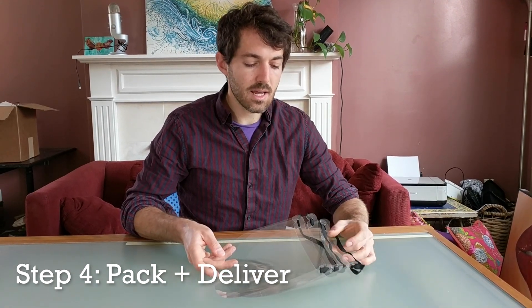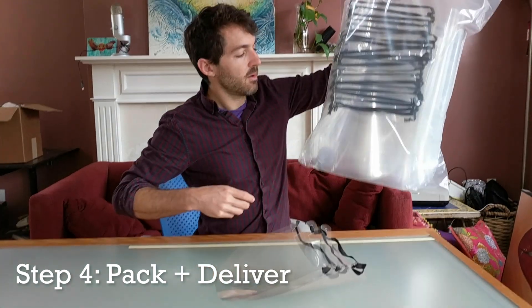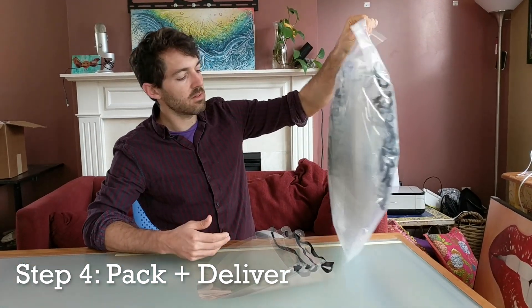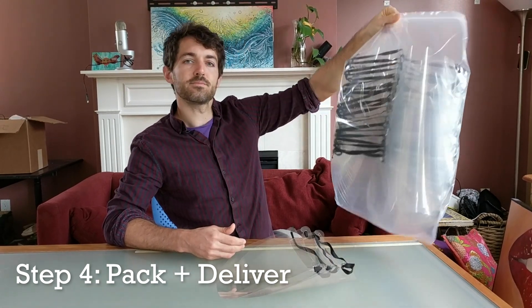What you want to do is stack them into rows of 25, and then put each row of 25 on the inside of the bag. This makes for 50 NYU face shields. Thanks.